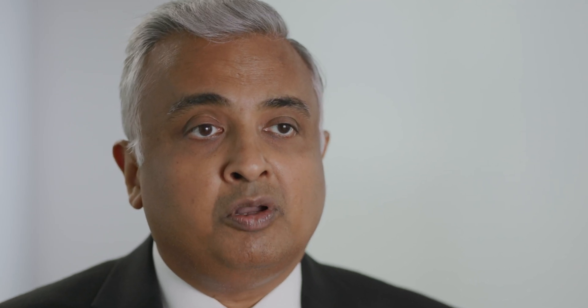At Valley we have been fortunate to be at the forefront of evaluating coronary artery disease. We implemented CT-FFR in 2019, so we were one of the first programs in New Jersey to have implemented CT-FFR — the HeartFlow approach — to evaluate blockages.